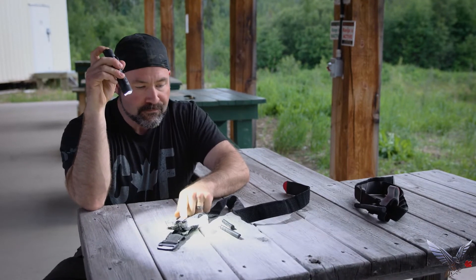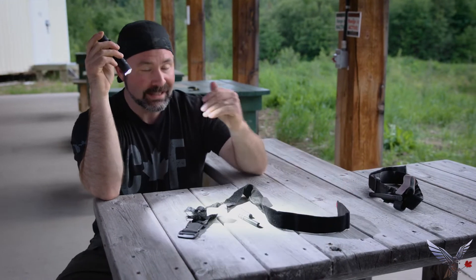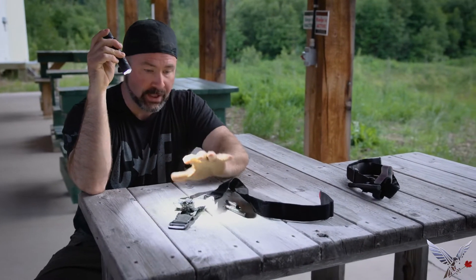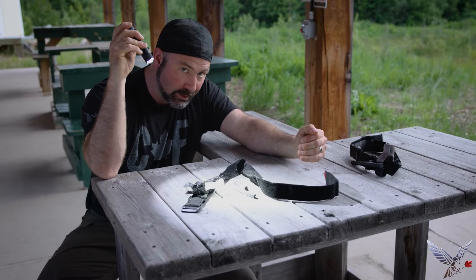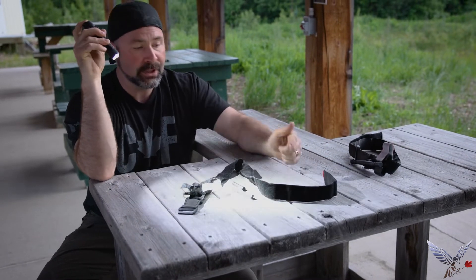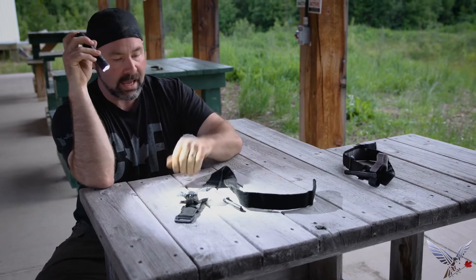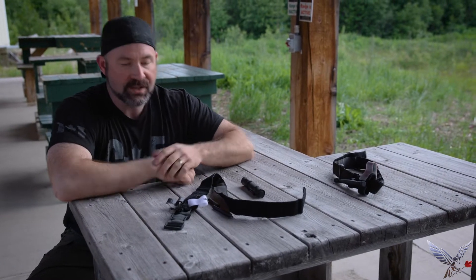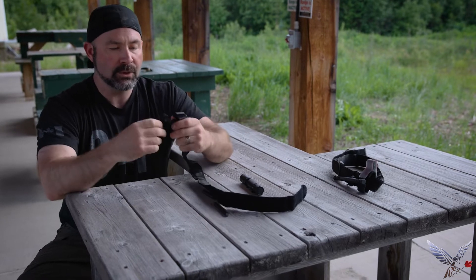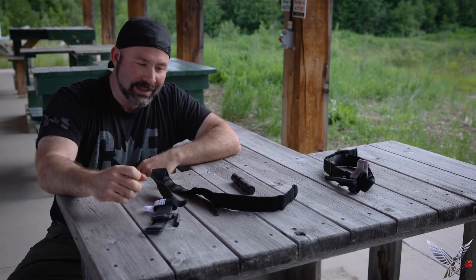Let me save you some money — and potentially save their life. This is trash, hot garbage. If you haven't already heard about this from other reputable people — Bear Independent comes to mind — it's trash. You shouldn't use it. Please allow me to save you the $10 you would spend on one of these and demonstrate why you shouldn't be using it. That's really the extent of what I wanted to say. If I continue to abuse this thing, it would just continue to fall apart. The proof is in the pudding at this point.